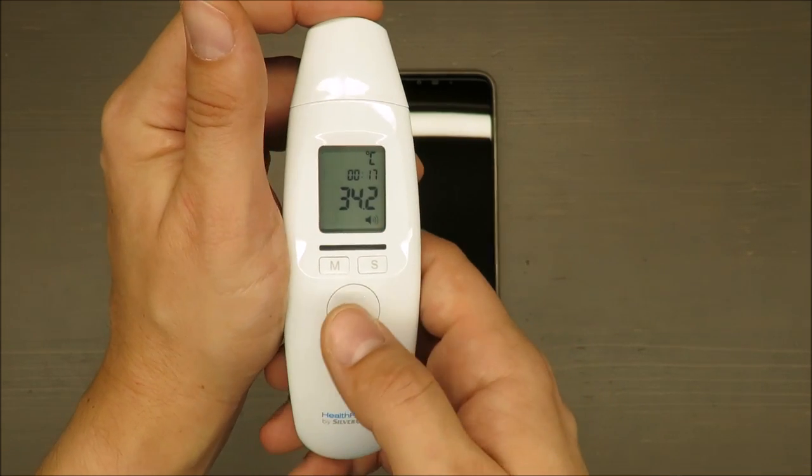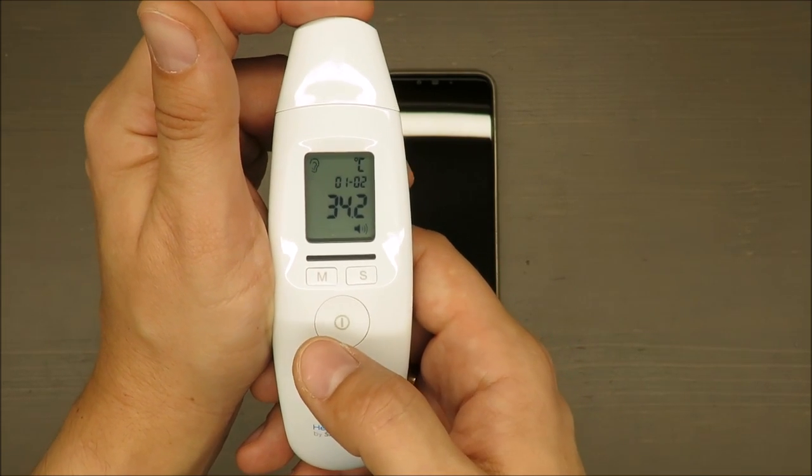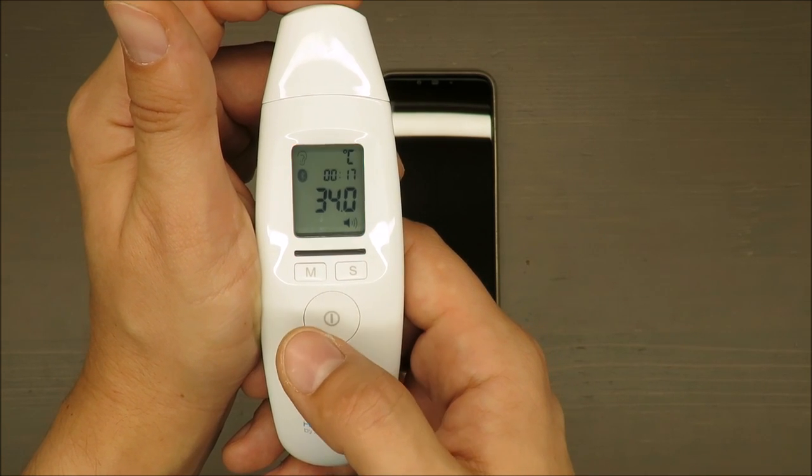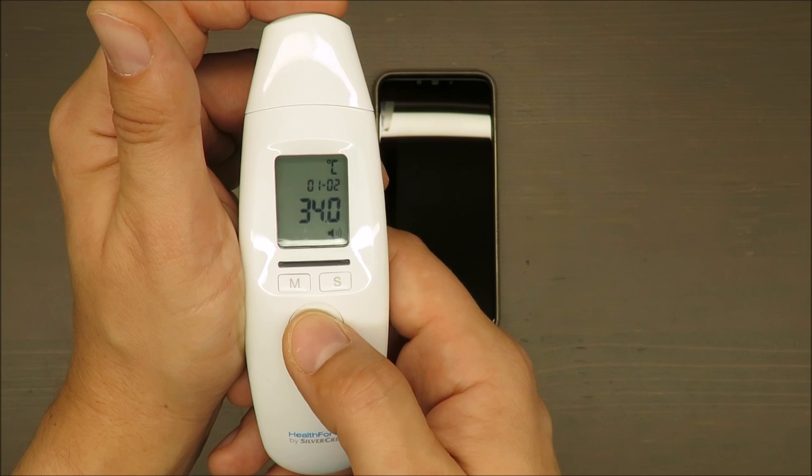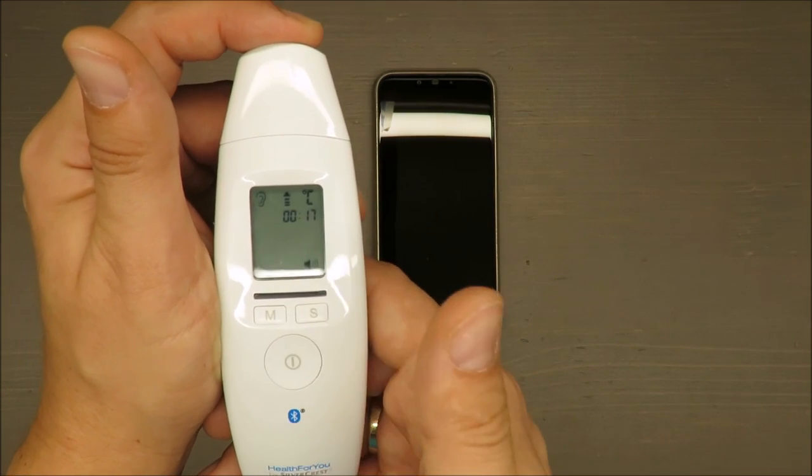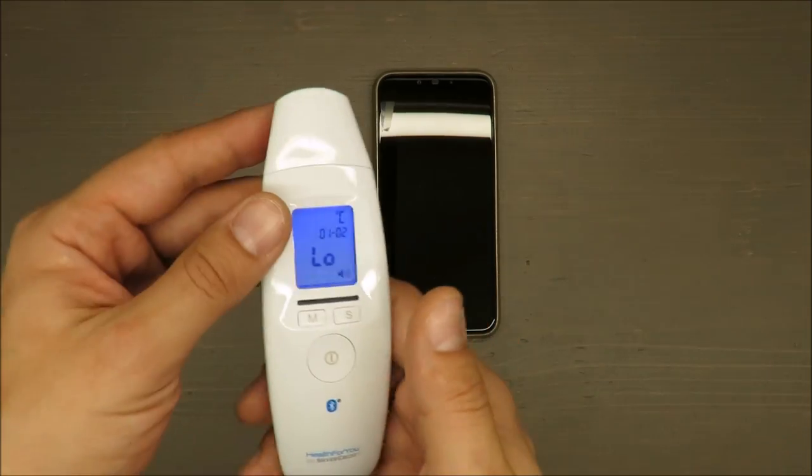The same spot, I'm not moving an inch, and temperature is each time different. It's quite fast, I have to admit, and now it's low.